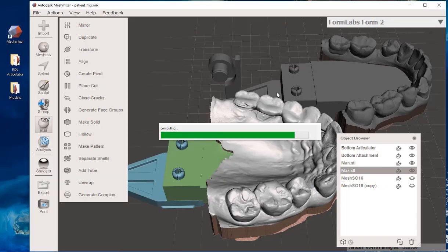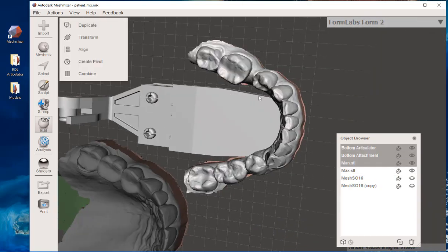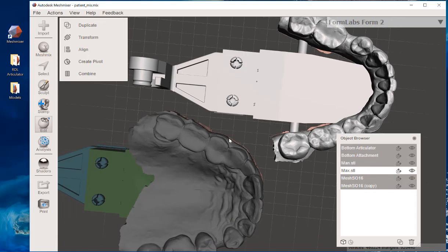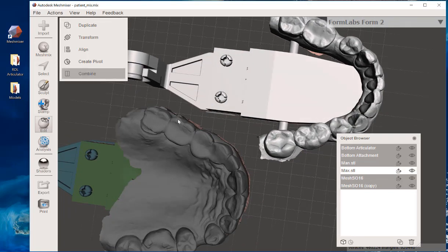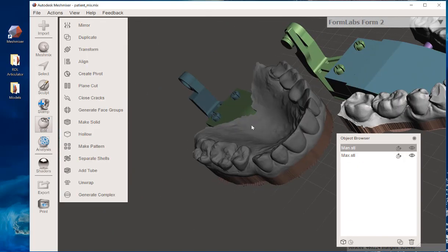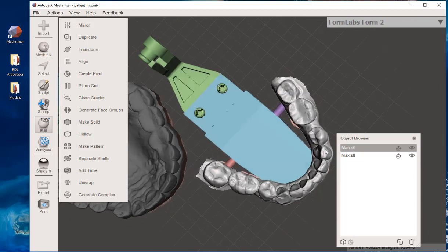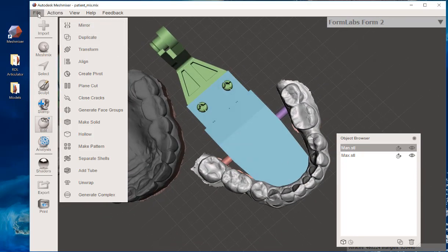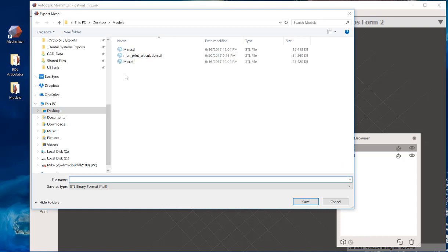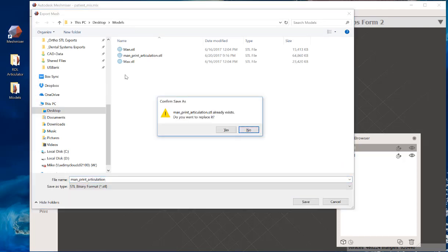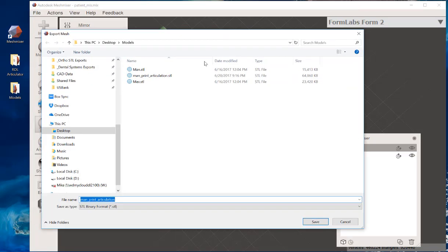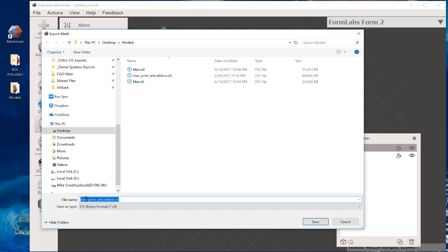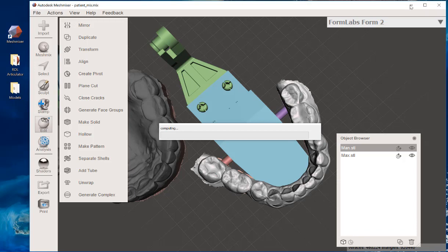And then the same thing. Do that for the lower, but remember I have two other little tiny parts that I want to pick up here on my lower. When you select all of them, I want to get rid of that. Looks good. Combine. And now it's going to create just two files here. Max and Man. Here's your Max. Always one part. Man always in one part right there. Then on my Man, I click Export. File, Export. Man Print Articulation. I must have saved the other one as Man. So let's call this, I'm going to rename this one to Max. That was my mistake. And then I'll call this one the Mandibular Man Print Articulation. And I hit File, Save, or Export. And now I'm ready to bring it into my Formlabs 3D printing software.